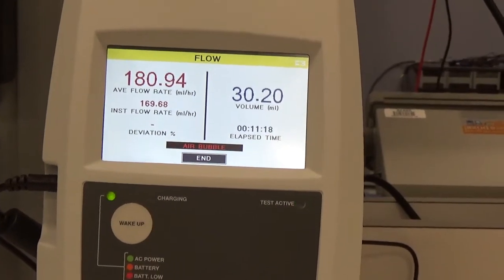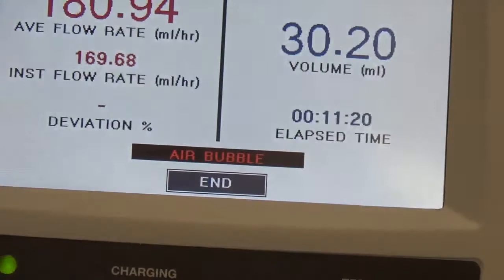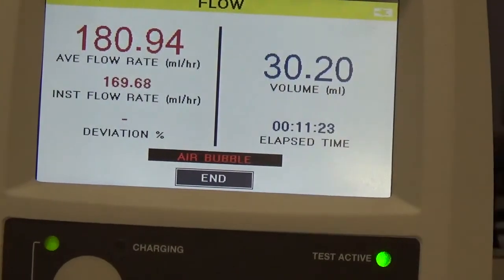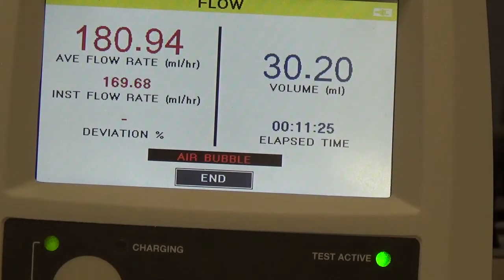One other thing that I did do intentionally, I added an air bubble, just so you can see that the device does show if any air bubbles come through, which may mess up the measurement.